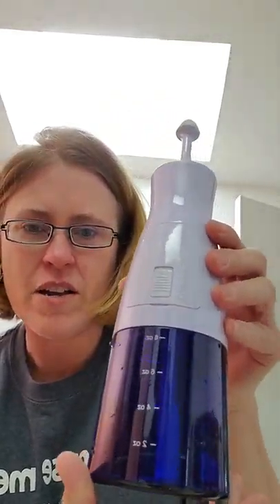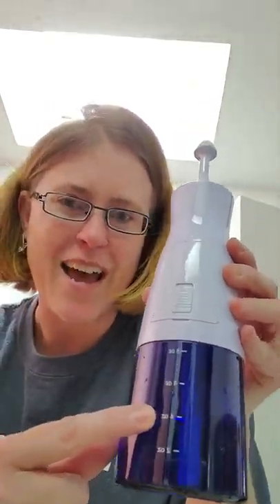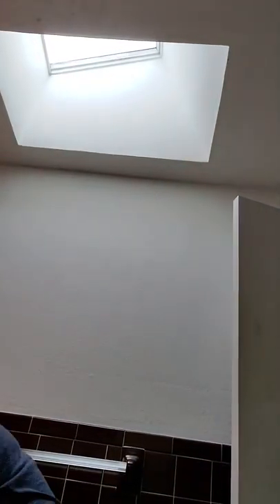Press the button. I can breathe, I can talk while doing it. It's kind of like getting water up your nose at the pool, just holding it for a few seconds — I counted to about five seconds, and I've used half of it. A little bit went down the back of my throat, but that's normal. It kind of tastes like saline solution.